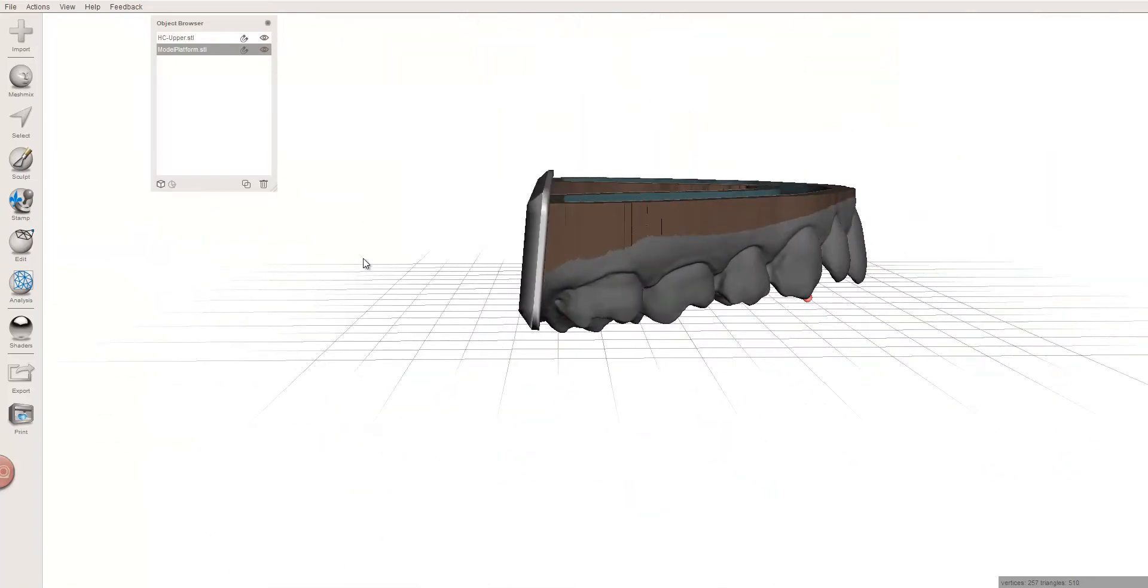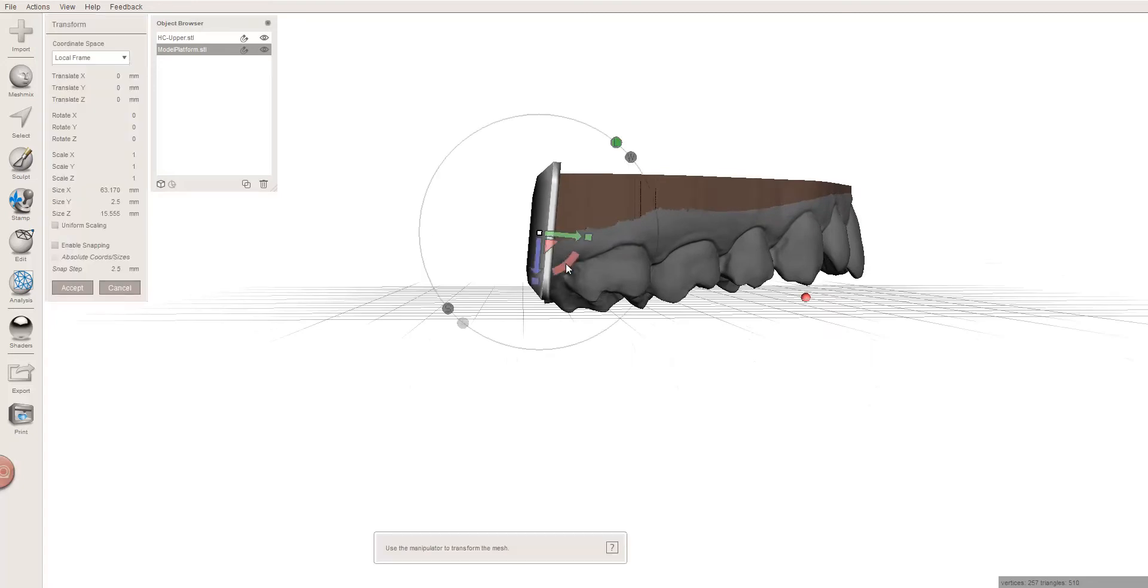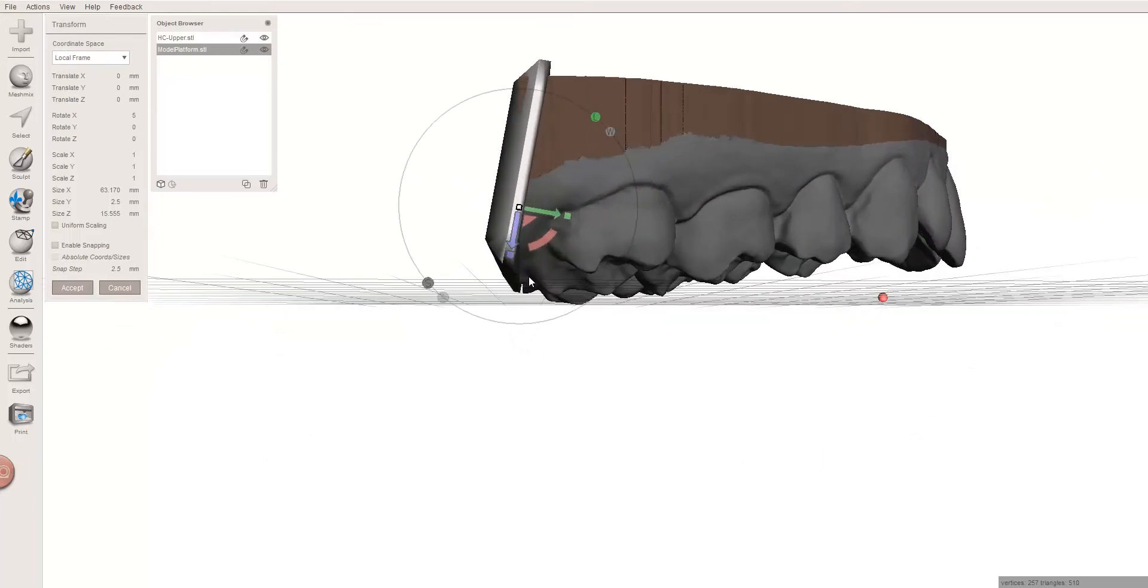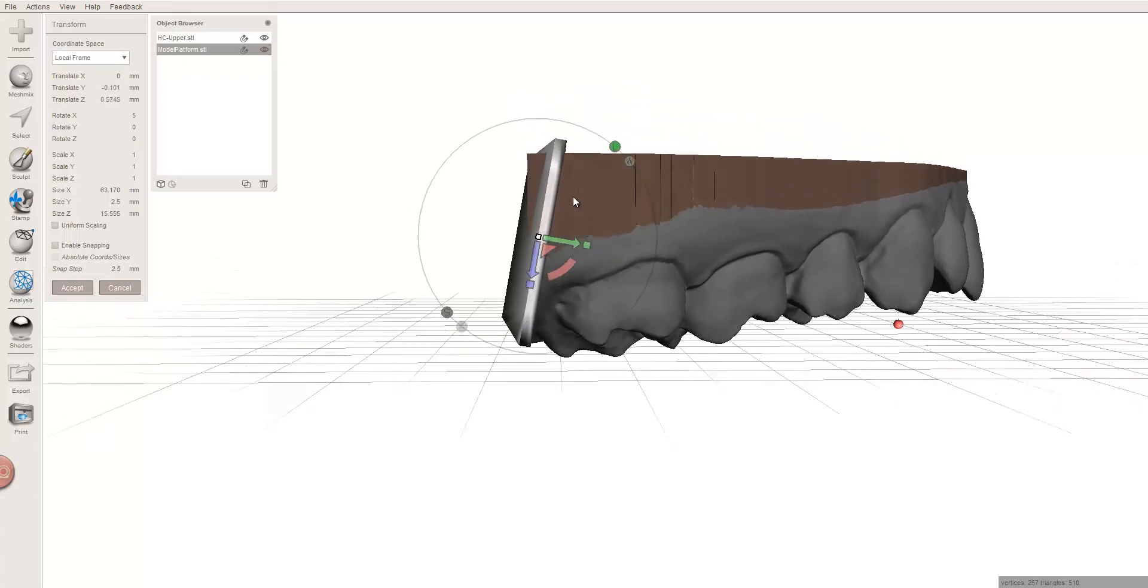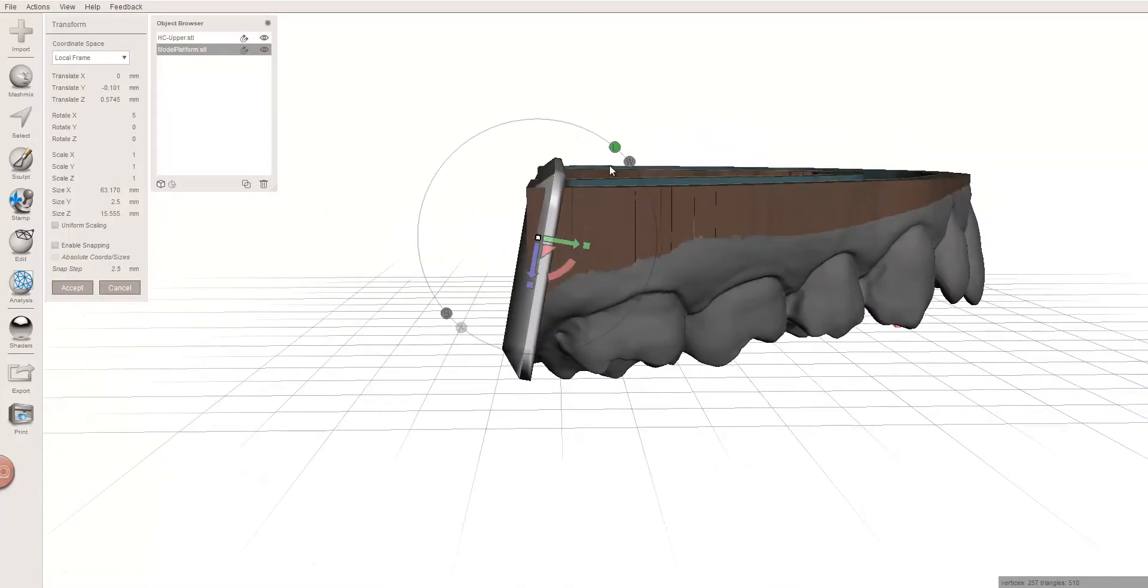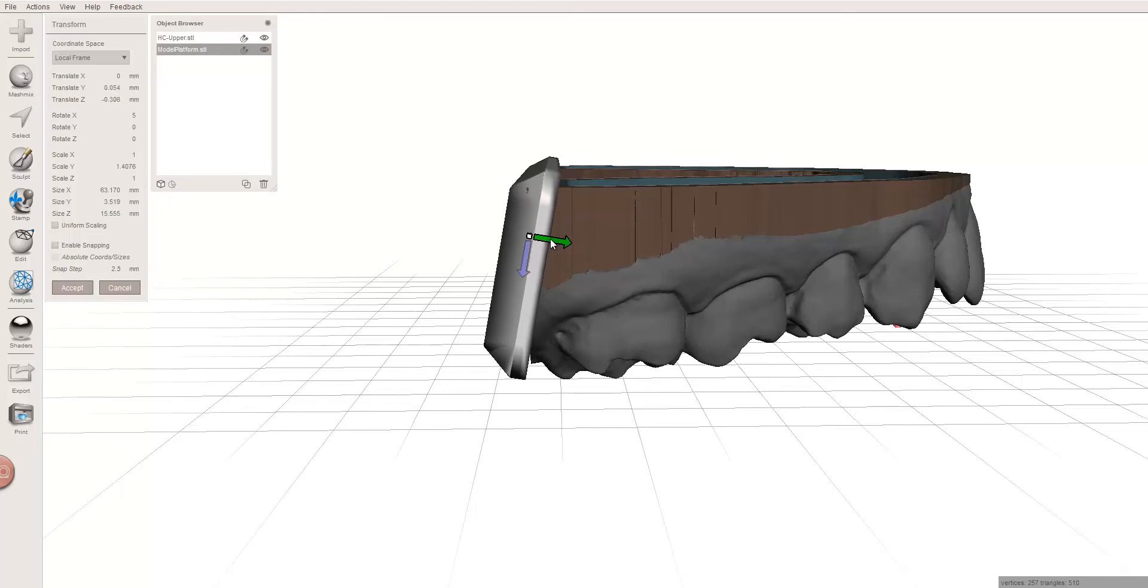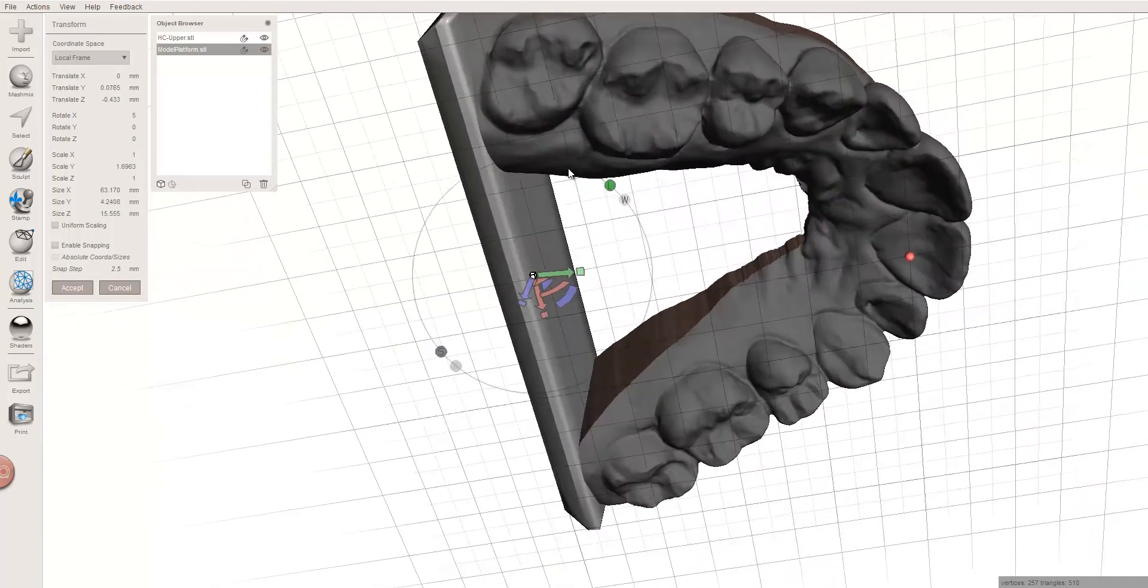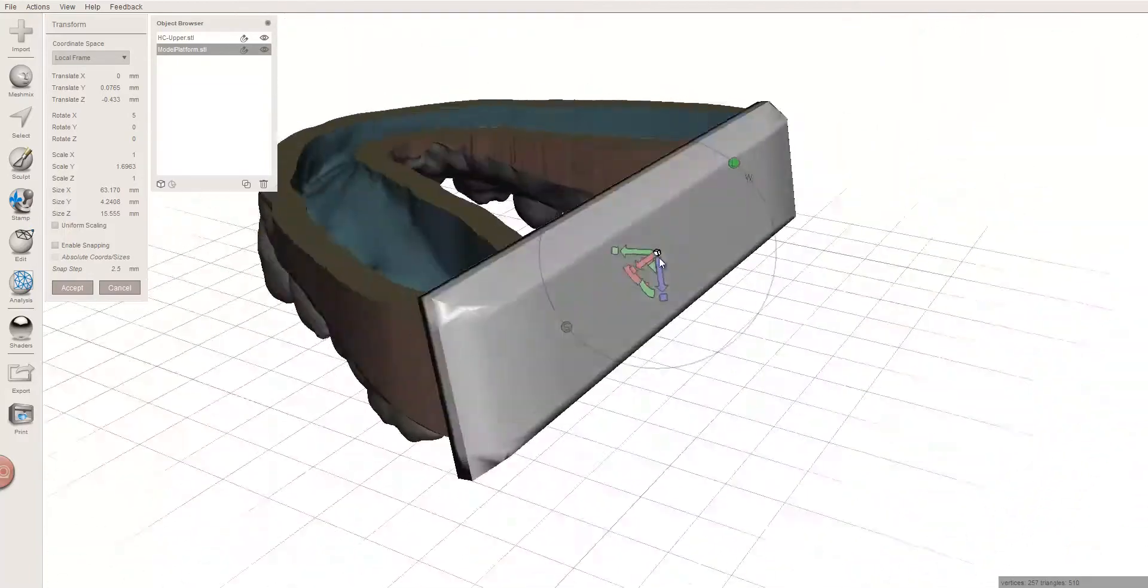You can do the same thing with a 10 degree. Let's take a look and see what that looks like if I change it another 5 degrees. Sometimes you want to make sure that it's closed up here. There's nothing there, but now you're sticking out, so what are your options? The easiest option is just to grab, make sure you're in the local coordinates, not world coordinates but local coordinates, and just expand it this way until you can both get rid of those points and not have any open mesh down here. And now we've addressed that, nothing's sticking out.